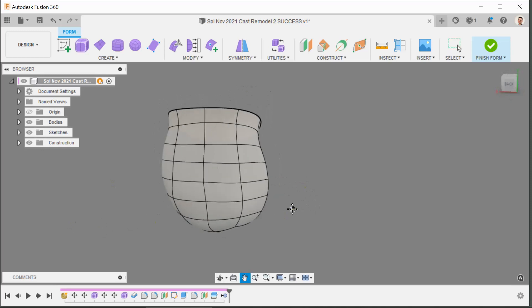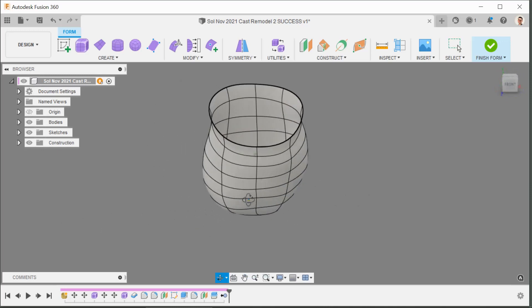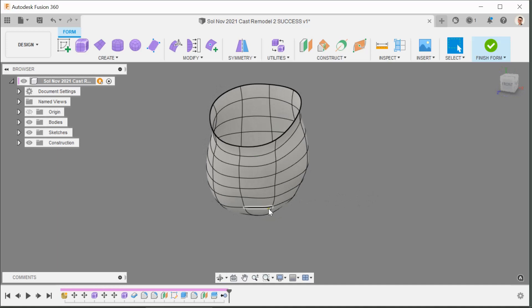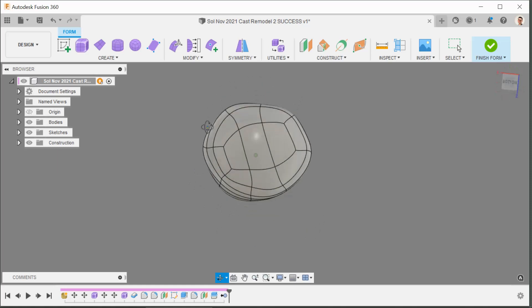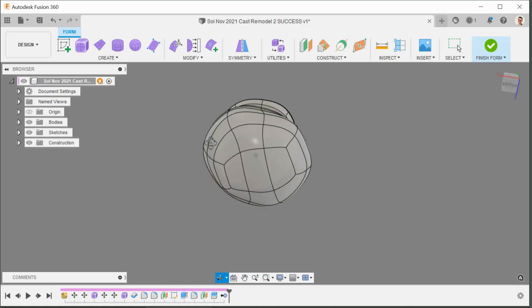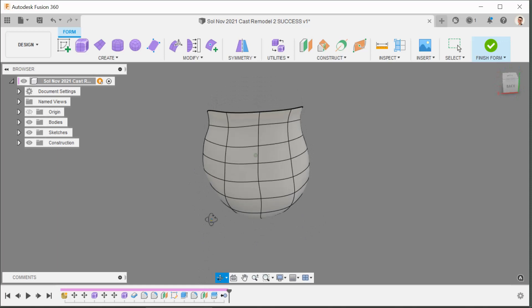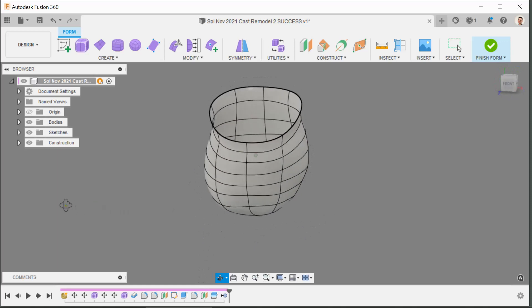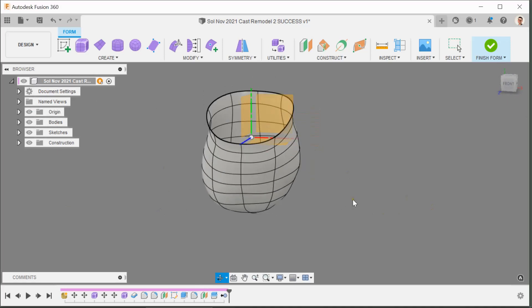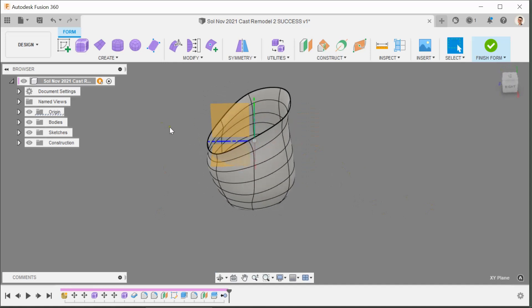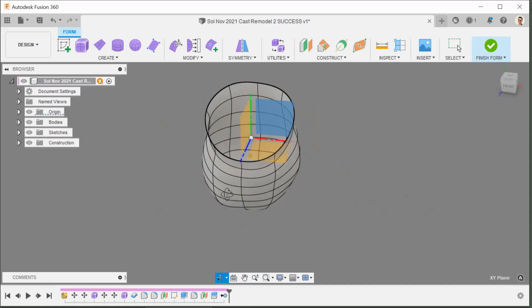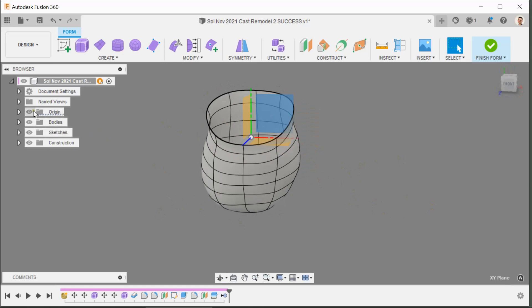The way I move around in Fusion 360 is something beginners really struggle with. I have my thumb ready on the shift key and I use the middle mouse button. When I push the middle mouse button and shift key together and move the mouse, I get full rotation control — forwards/backwards tilts, left/right spins the socket. Everything should be squared up with the origin, which is really critical.